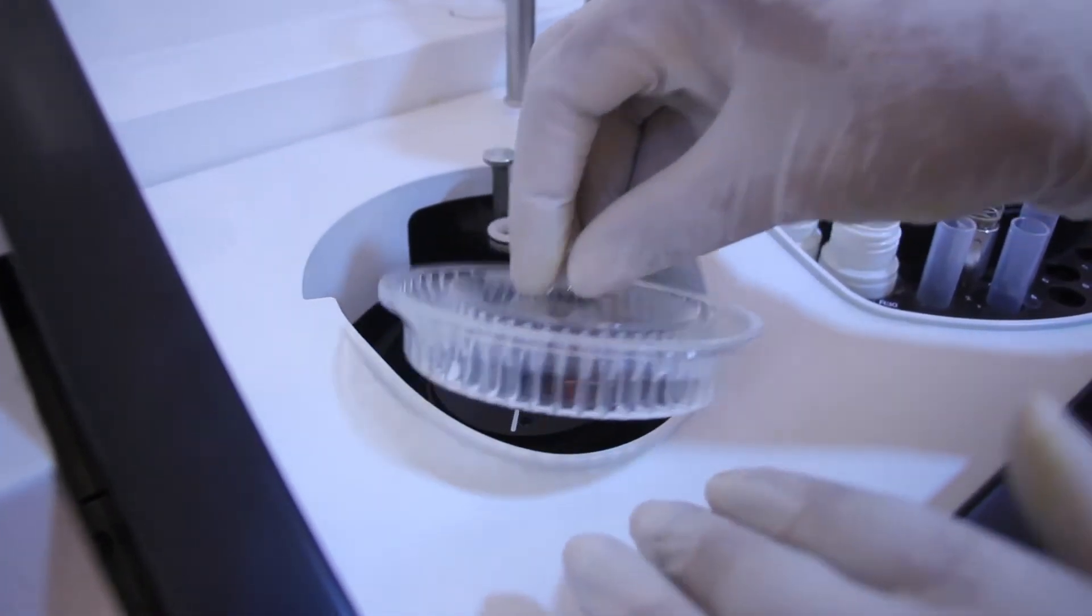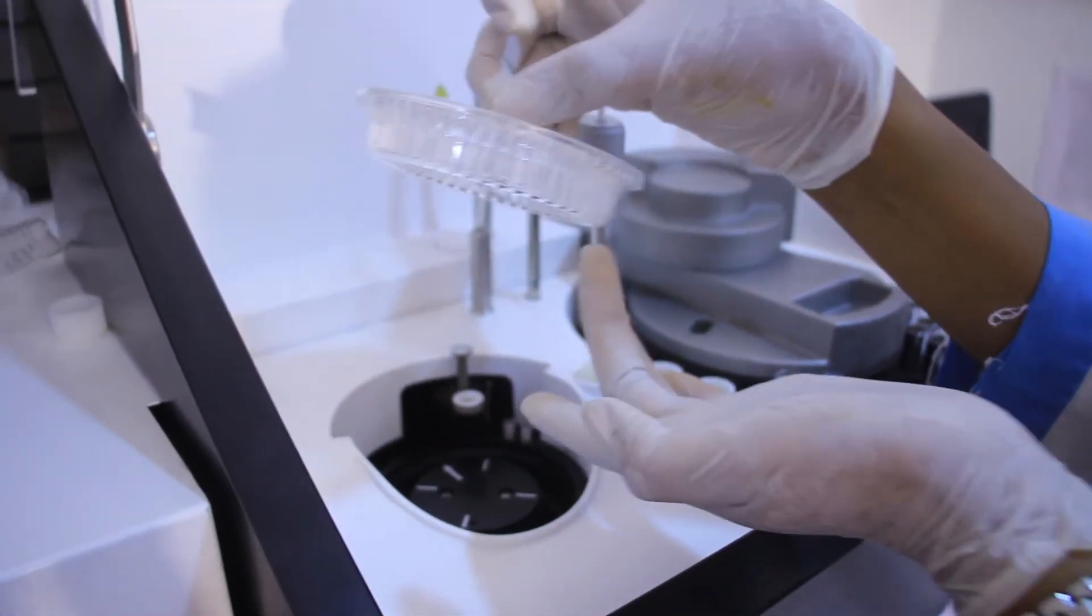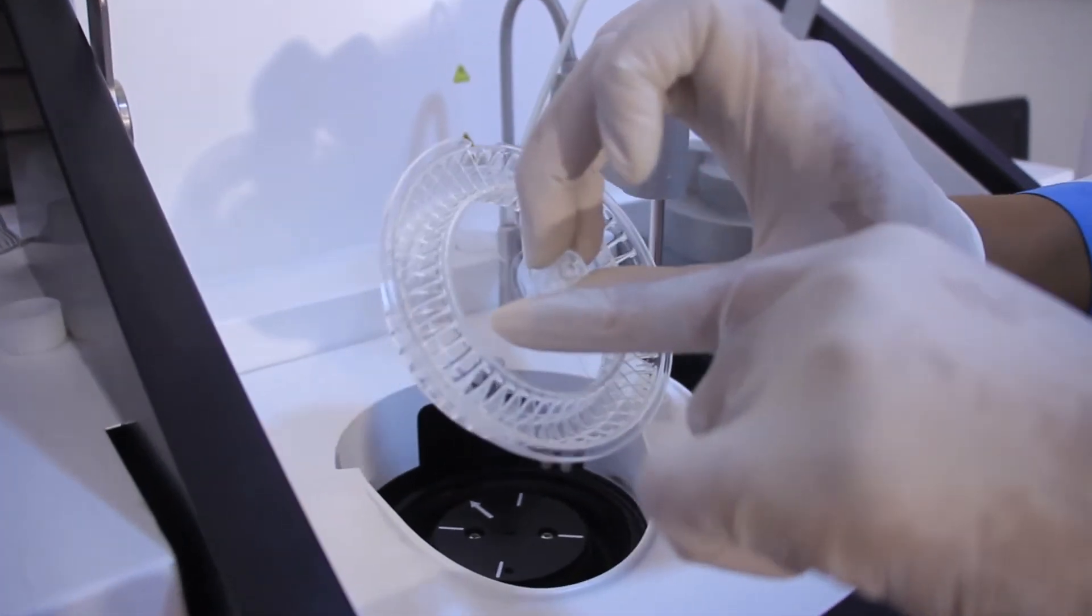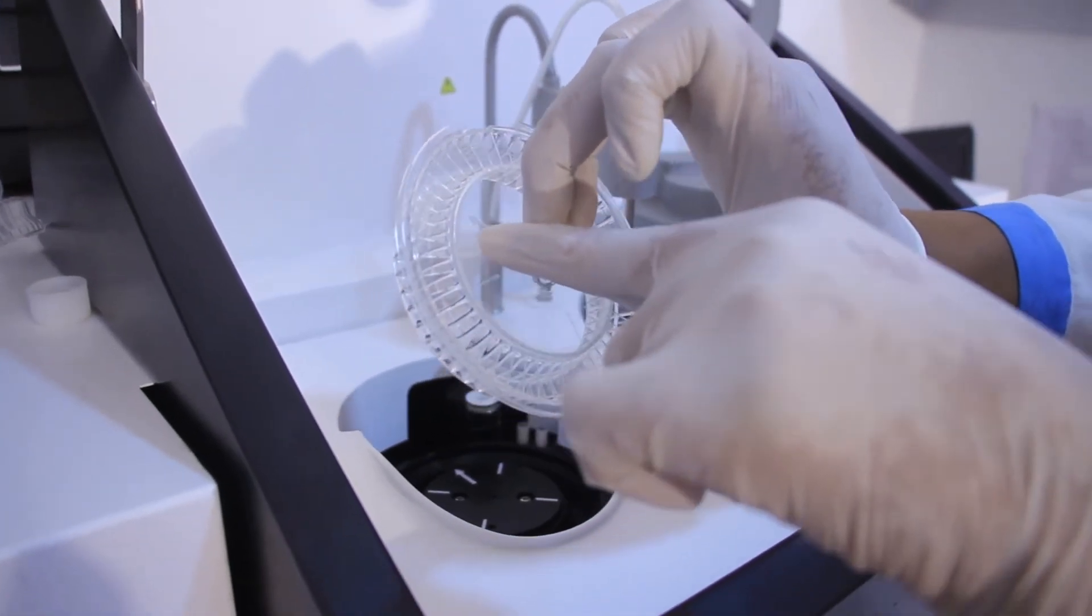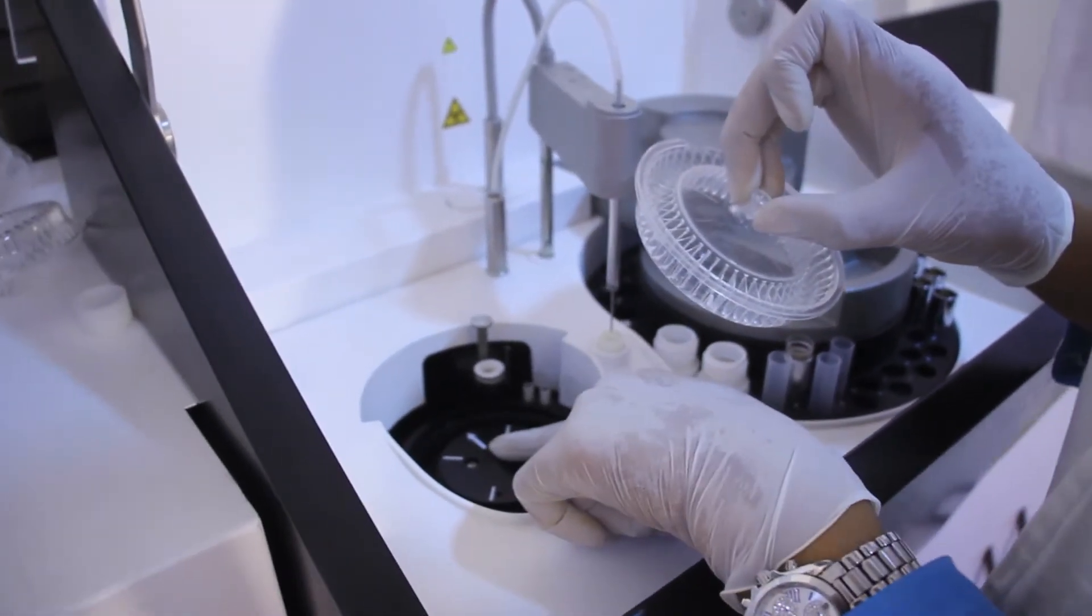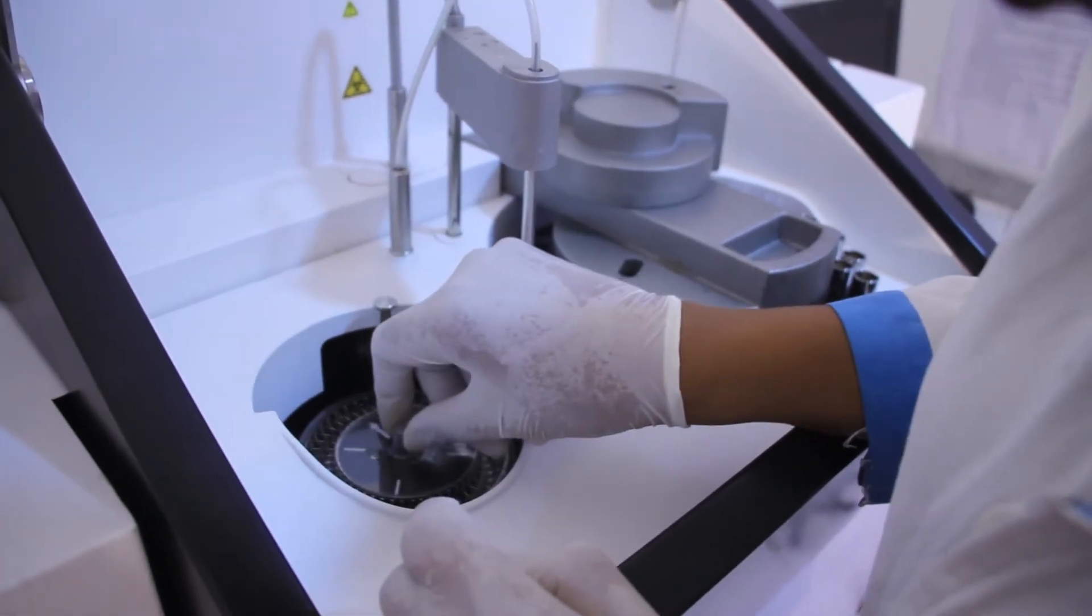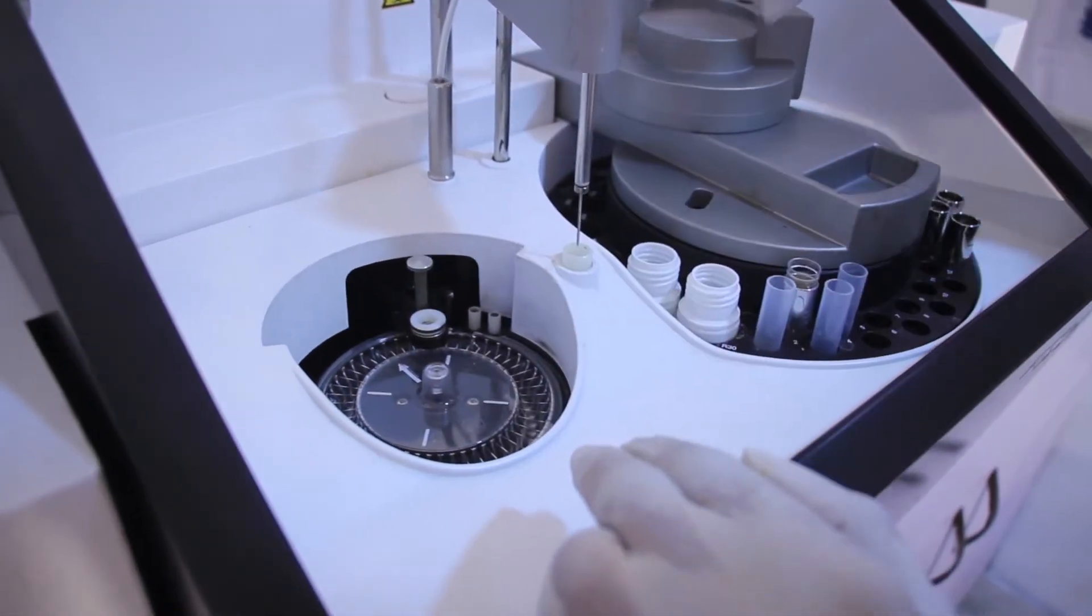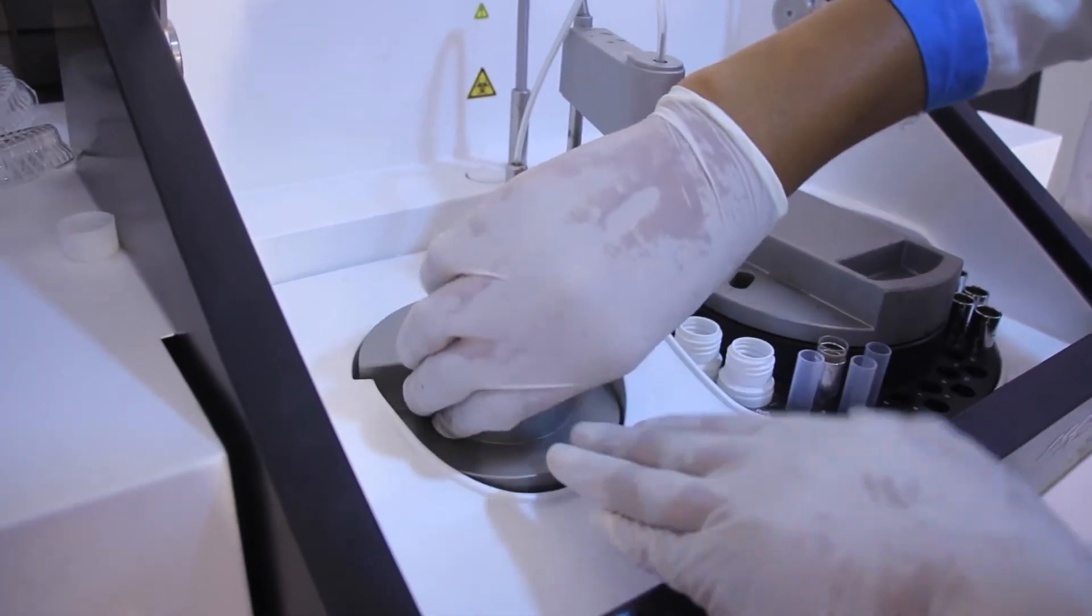We're going to learn how to properly place our cuvette. You don't hold the cuvette rim. That's one of the precautionary measures. We hold it this way. So over here, you can see we have different arrows. However, this has an arrowhead. So we'll try to fit this arrowhead into this arrowhead, this one with arrowhead. So we'll put it in and then we'll move it, tilt it a little bit. Now it has entered into position. We'll cover it and we'll place this properly and carefully.